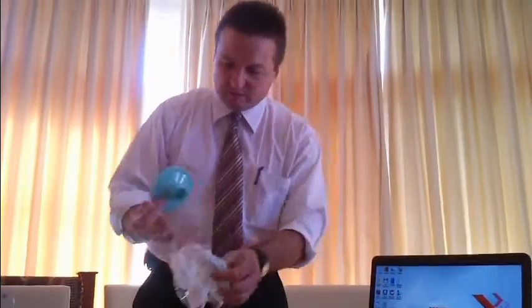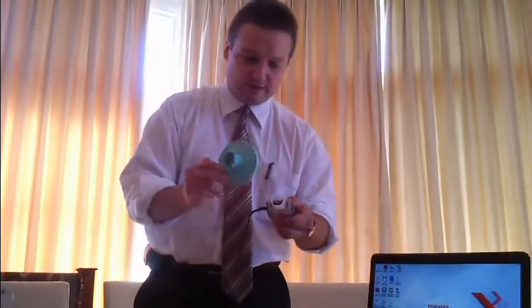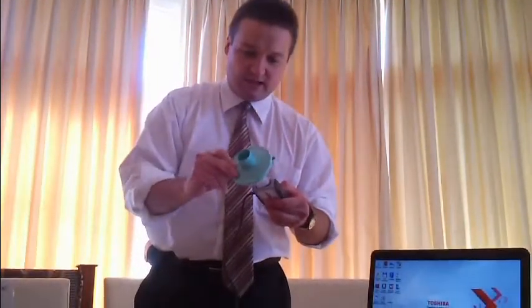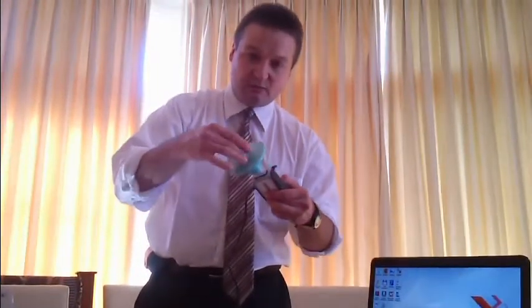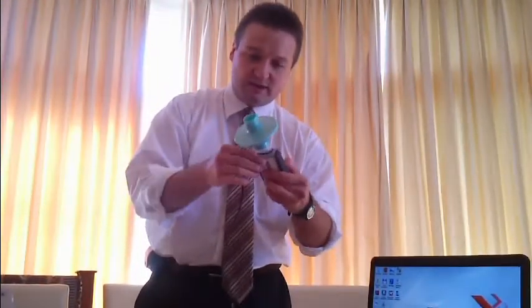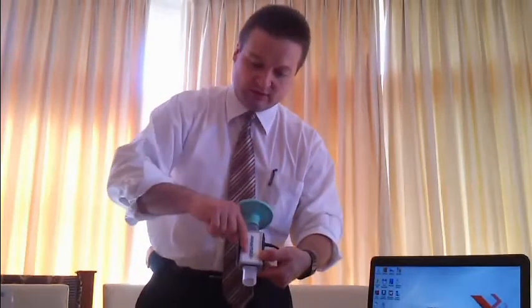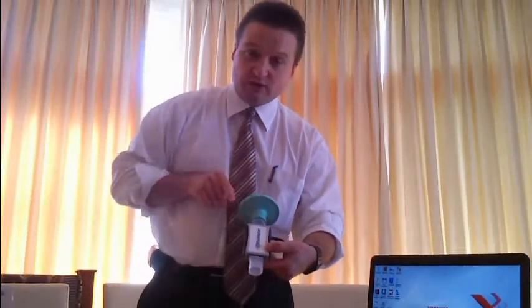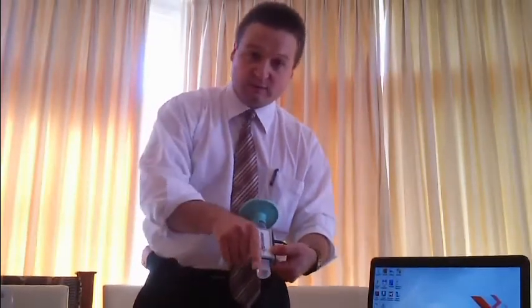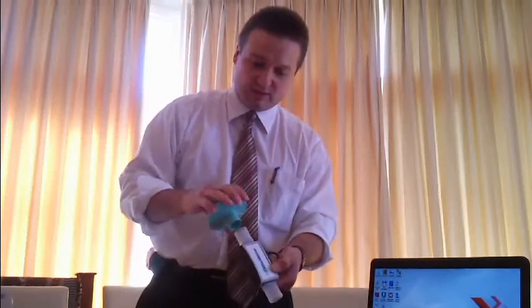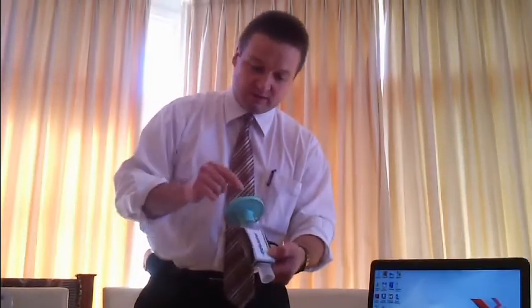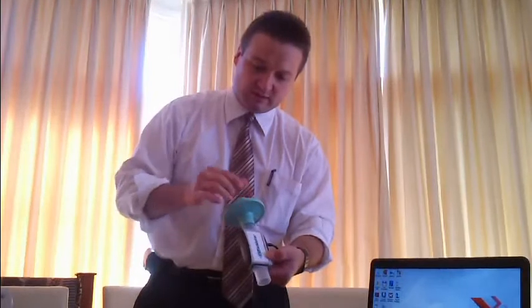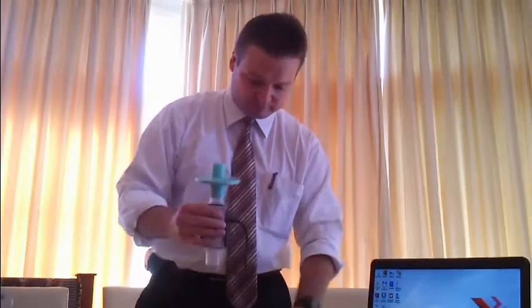These are single-use bacterial filters with 99.999% efficiency of filtering out viruses and bacteria. To have 100% efficiency, you can also disinfect the tube inside. There is an arrow on the flow meter. The arrow should be pointing outwards from the patient, and you should apply the bacterial filter on the side where you're going to blow into the tube. The bacterial filter should be applied on the other side of the arrow.